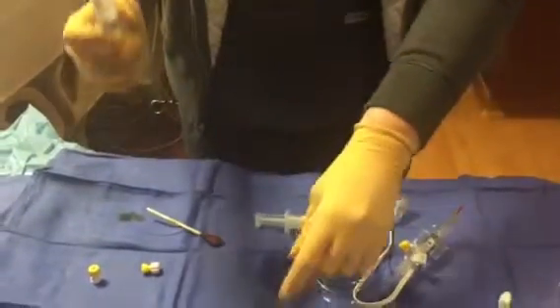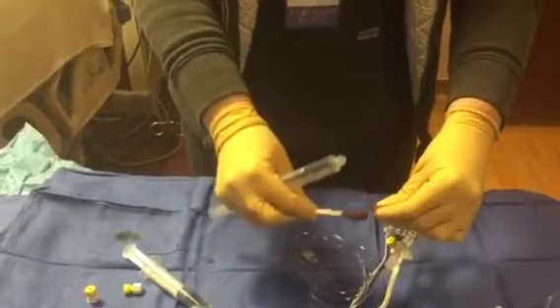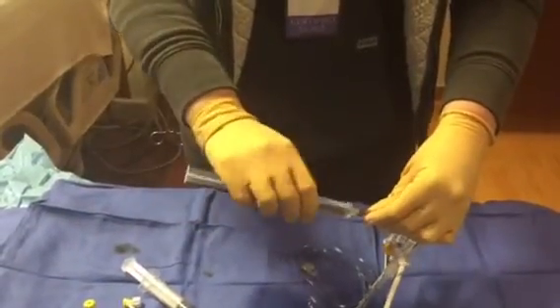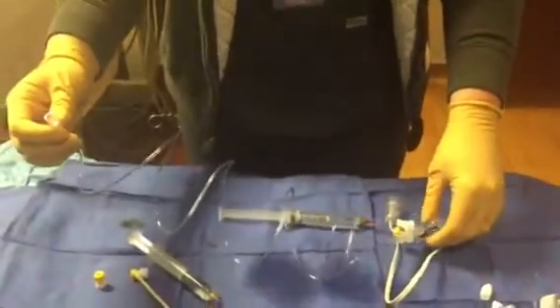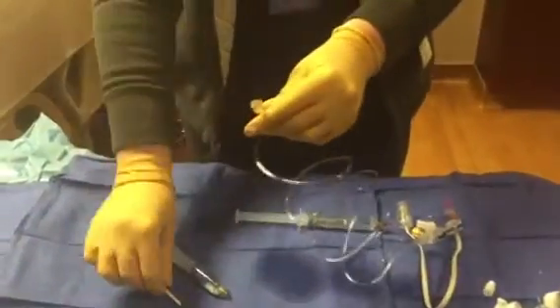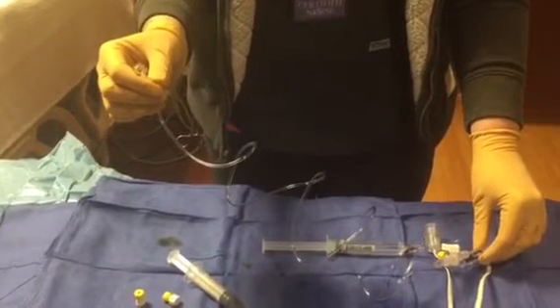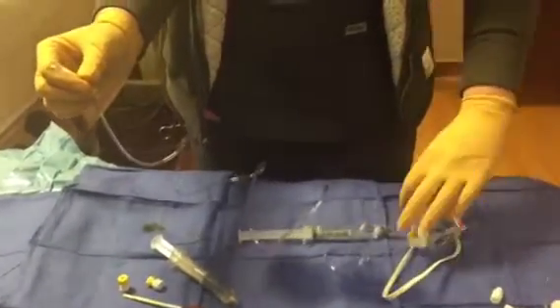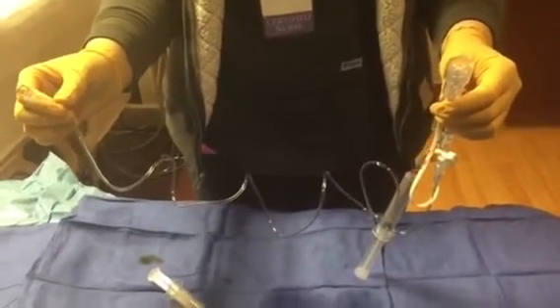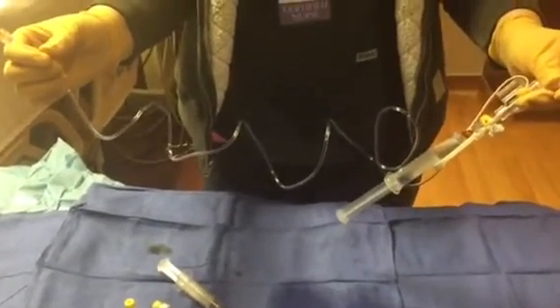If you want, you can switch to a full syringe so that from this point forward you know there are exactly 10 cc's in it. If there's less, you know someone flushed the system or flushed into the brain, so you want to track how much you have. Clean off this end — this is the end that will attach to the person's exterior ventricular drain. Once attached, you'll monitor intracranial pressure by connecting the pressure cable to your monitors. And that's a wrap.